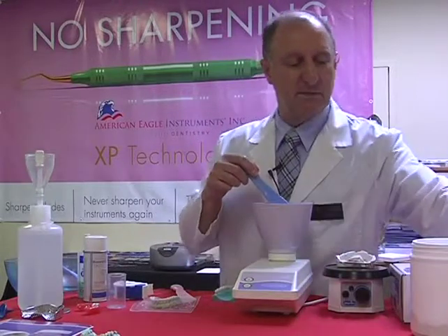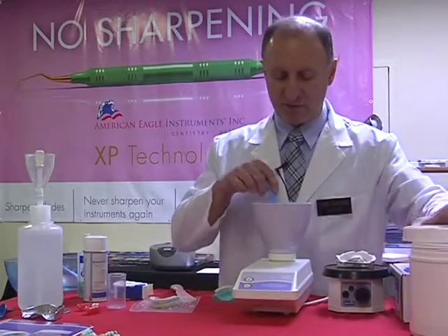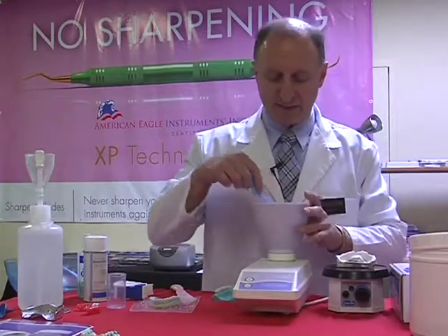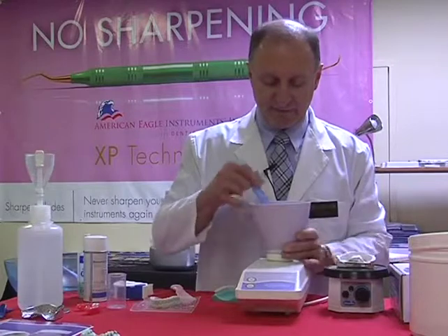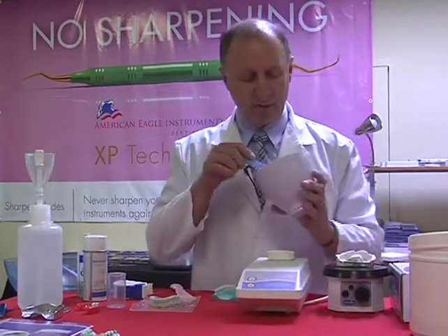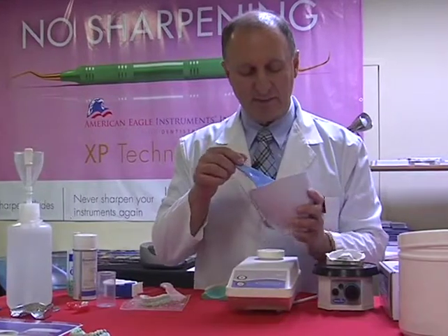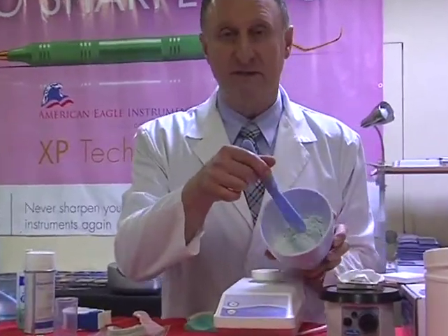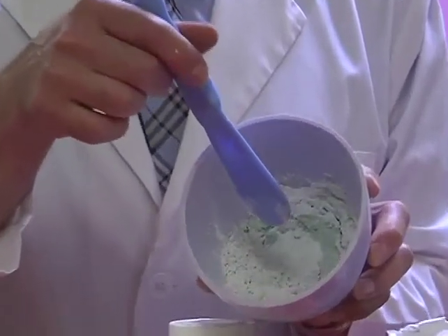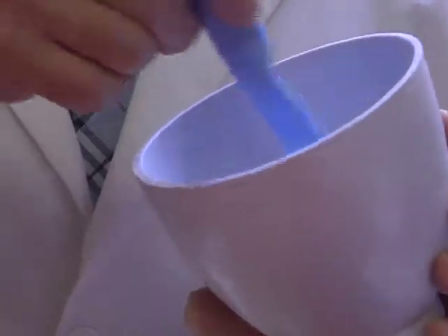So let's combine these two together and show you what I'm talking about. It's still absorbing inside, but let's see if I can turn this towards you. You can have a look inside. It almost looks like there's a small amount of cracking on the surface. I don't know if you can pick this up on the camera. So there's cracking on the surface.